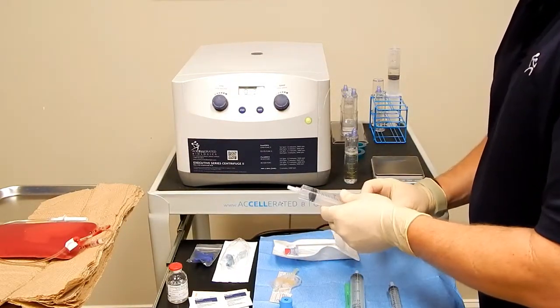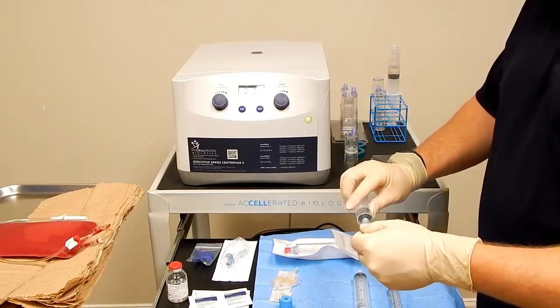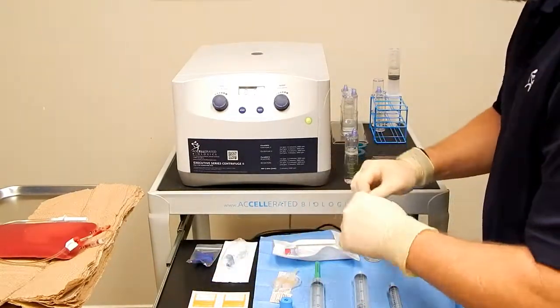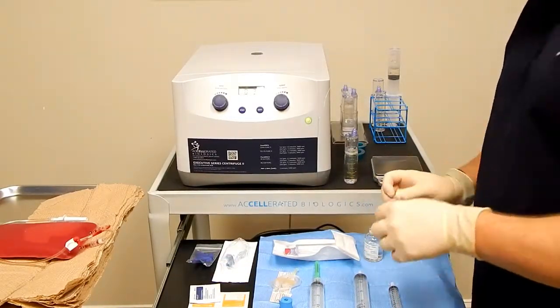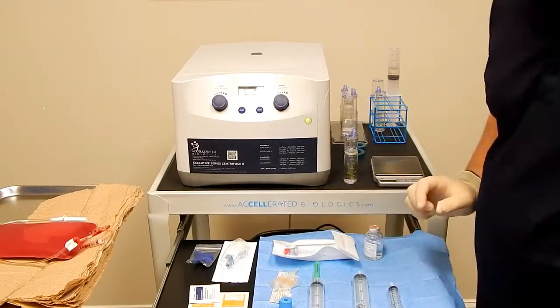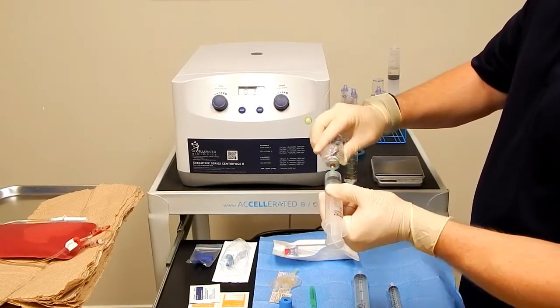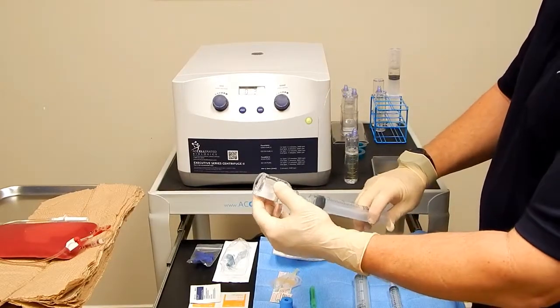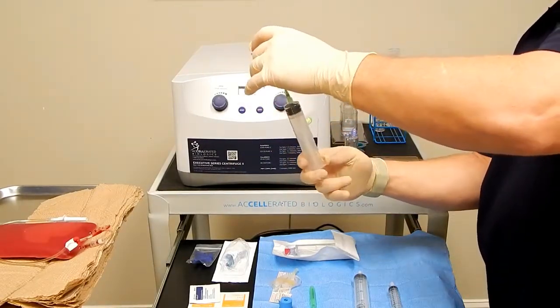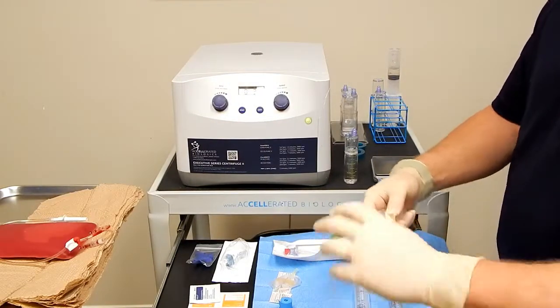To get ready, first we're going to draw back 5 cc's of anticoagulant. Use the filter needle for that. Pop open our cap of sodium citrate anticoagulant. Aseptic technique. Now push 5 cc's of air into the vial so it's much easier to get the anticoagulant out through the filter needle. We're going to get 5 cc's.